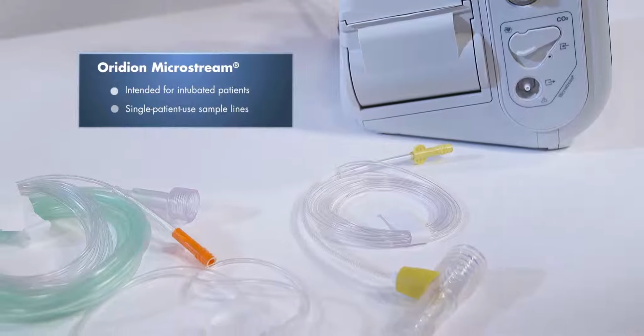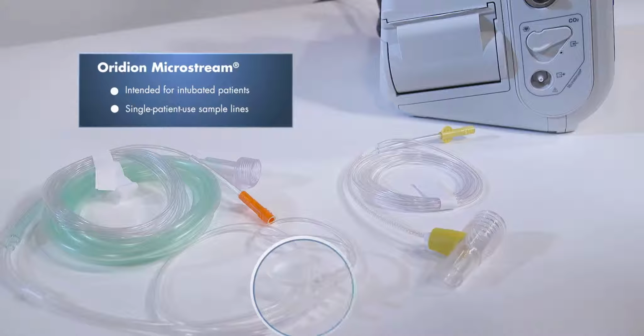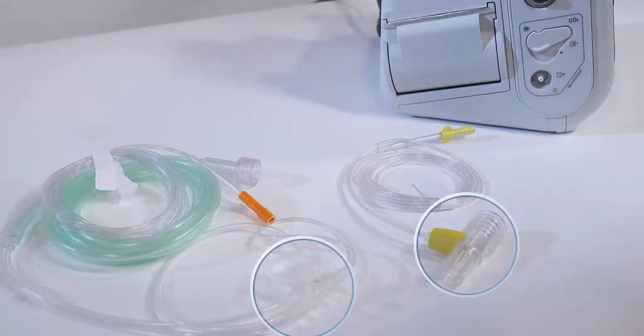The systems draw small samples of gas from the patient's airway via a nasal or oral cannula or airway adapter and pass these gases through a solid-state infrared sensor that measures CO2.